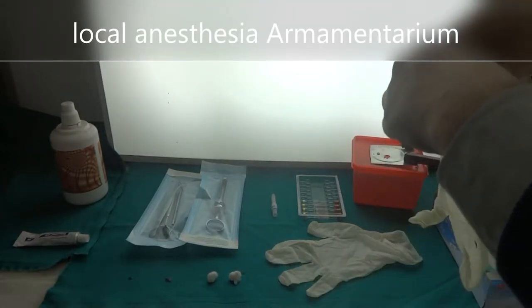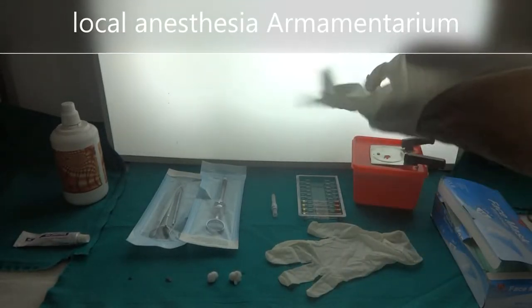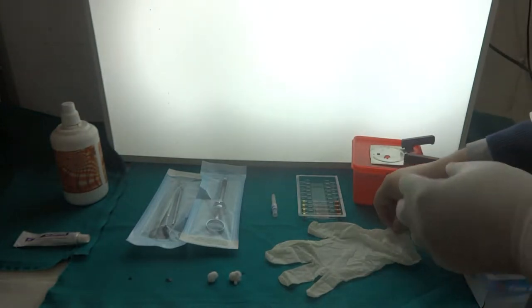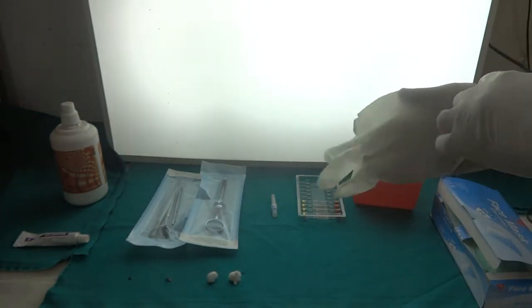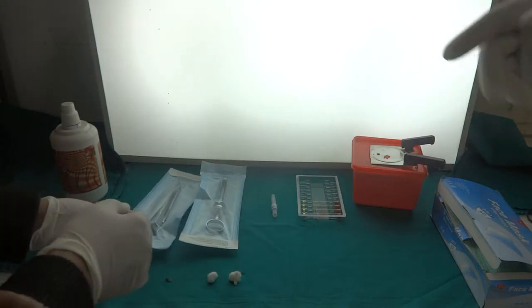In this video we are going to demonstrate how we ready local anesthesia armamentarium for local anesthesia administration, and toward the end we will demonstrate how we will discard needle and cartridge.